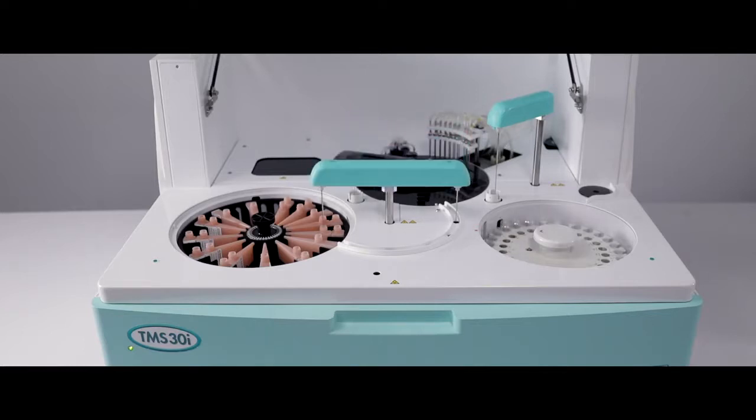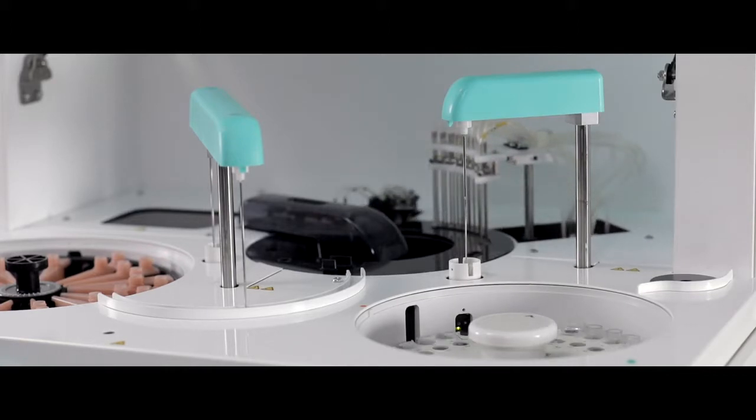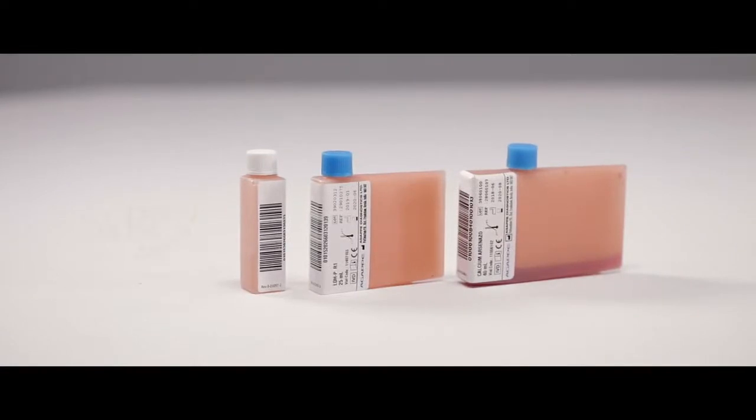TMS-30i is a viable and profitable solution for laboratories. It can consolidate biochemistry and immunochemistry parameters which ultimately provide you with the required efficiency for your lab operations. Agape completes the solution with its high quality and stable reagents that will ensure trusted diagnostic results.